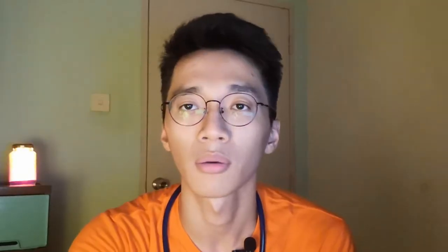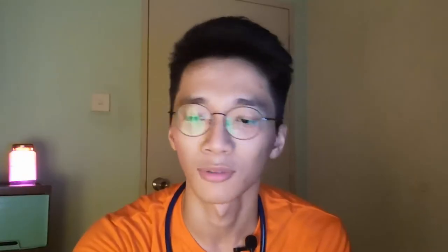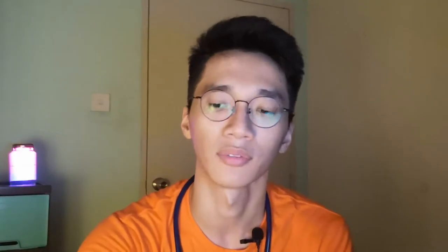Normally we use our stethoscope to listen to heart sounds, breath sounds, cough sounds, and also bowel sounds. So now let's grab your stethoscope and try this with me.